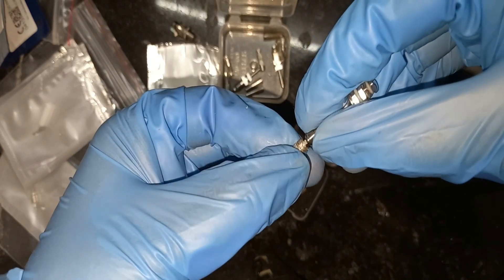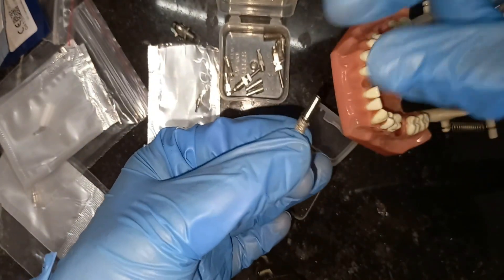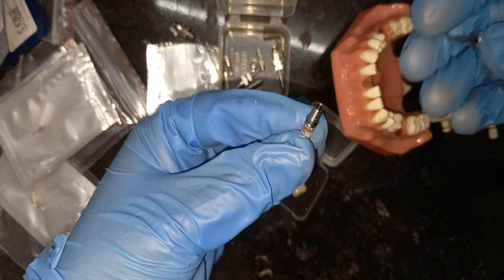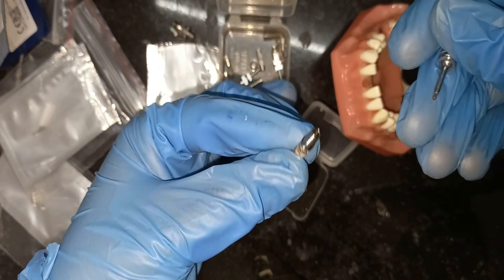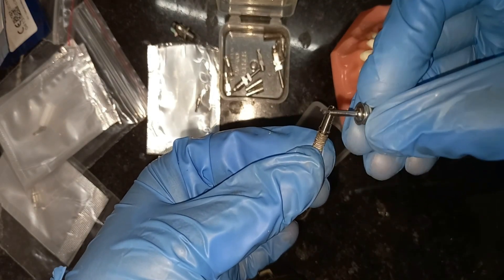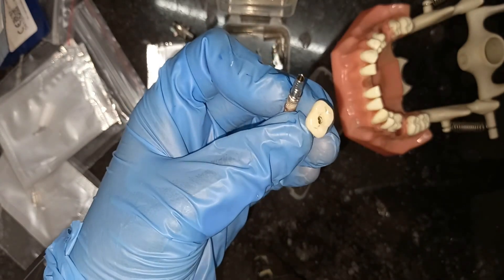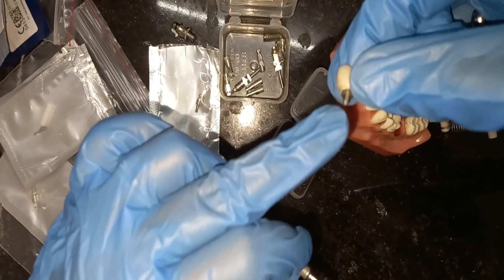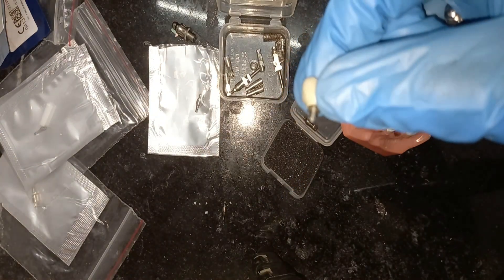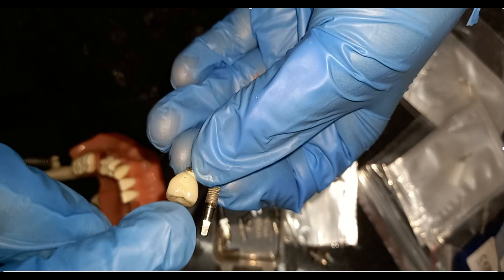The abutment is tightened to the implant with the help of an abutment screw — it becomes a single piece. In screw retained prosthesis, the upper part is the crown or prosthesis part and the lower part is the abutment; they are a single unit. In cement retained prosthesis, the abutment is not part of the prosthesis — first we screw the abutment and then cement the prosthesis over it.